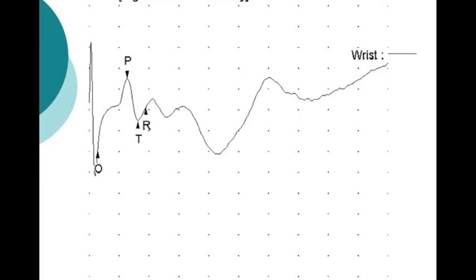Here's another example. What did we do? Even though the shock artifact is not too big, the machine for some reason picked the onset in the wrong place. It picked the T about in the right place, certainly the R in the right place, but certainly not the O. The O in fact should be here. You can see a clear deflection from the baseline when the potential starts to go up. And here you should override the machine and put the O where the red arrow points out to.